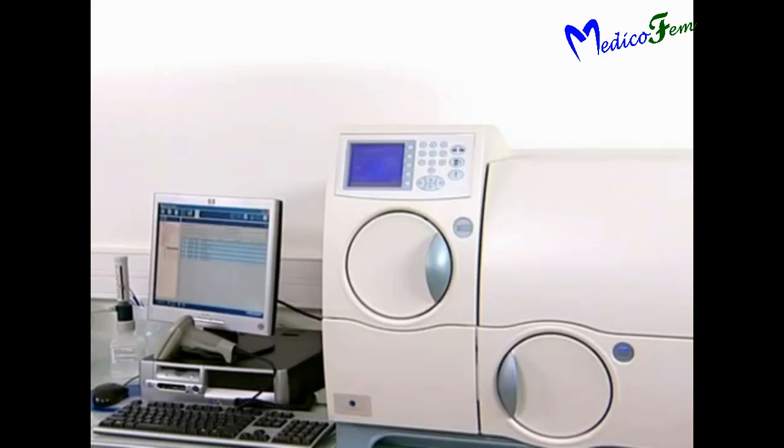In this machine, identification occurs by various biochemical tests and antibiotic sensitivity is done by MIC method for three different concentrations for each drug. This ID and sensitivity is detected by colorimetric method.